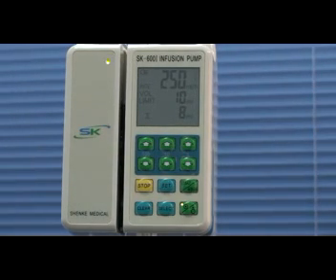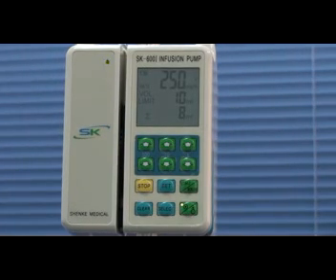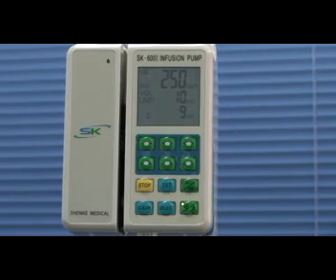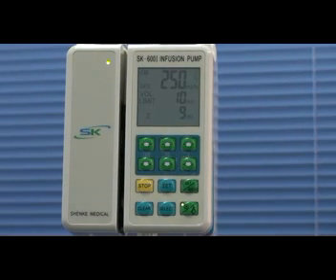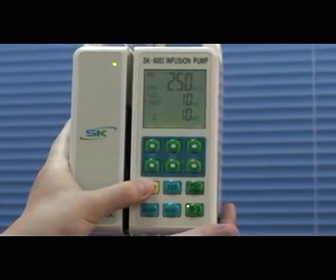At the end of the infusion, there will be the completion alarm to arouse people's attention. There is the completion alarm, press stop key to cancel the alarm and stop the infusion.